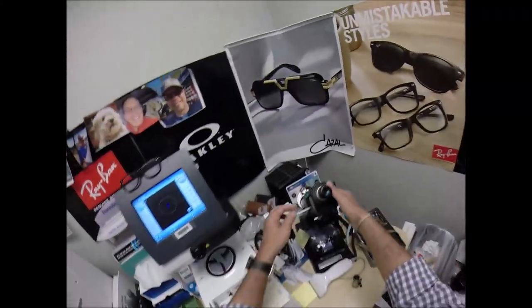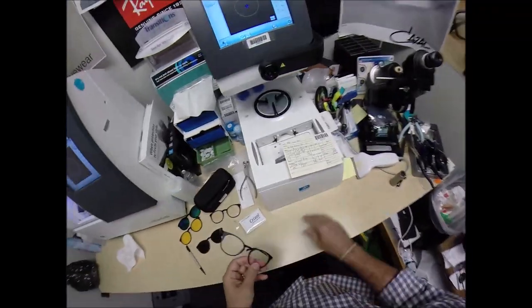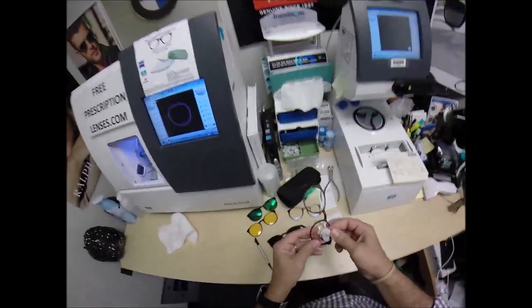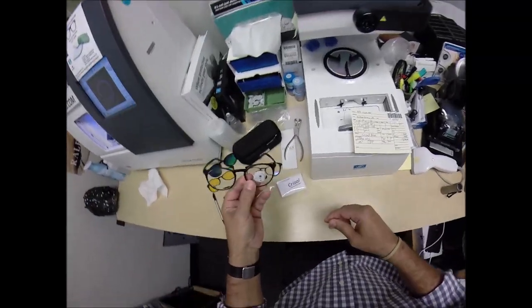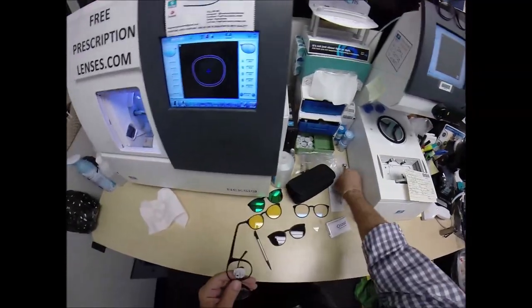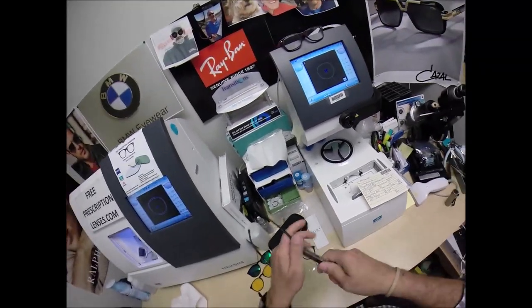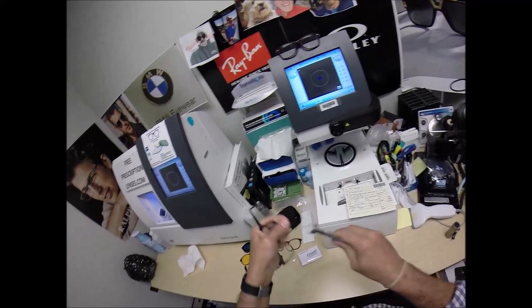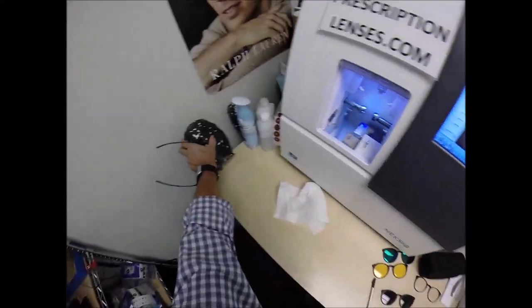So, we're going to do that. Where's your frame? There it is. All right, my wife is shaking her head at this point. Why do you drop stuff on the floor? Why? Why? Why? That is, my wife's voice is actually much deeper than that. Okay, so, I'm going to take that off and, yeah, you know that. All right, stick that on there. Okay, come down here.